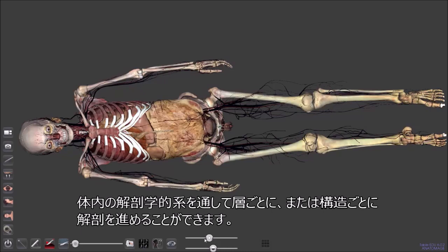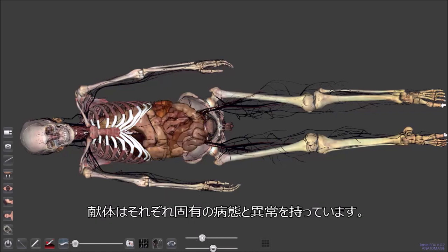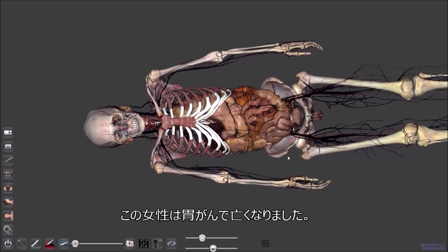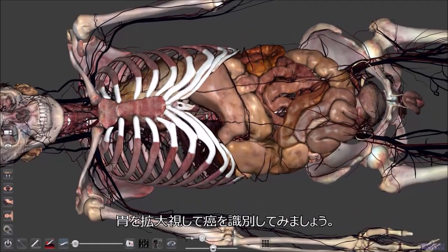All of our cadavers have their own inherent pathologies and abnormalities. This particular cadaver passed away from gastric cancer. We can identify the cancer by zooming in to take a look at the stomach of this cadaver.